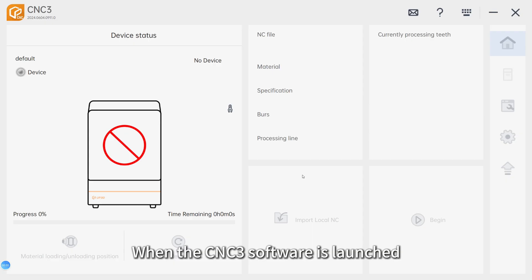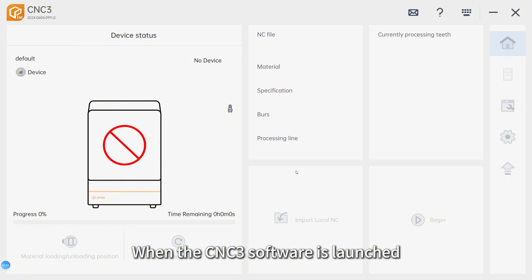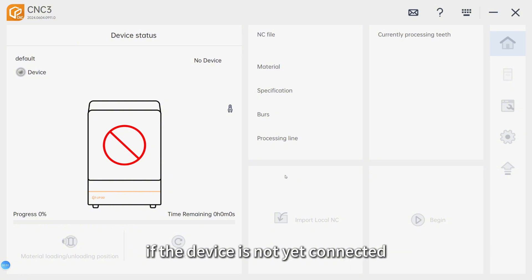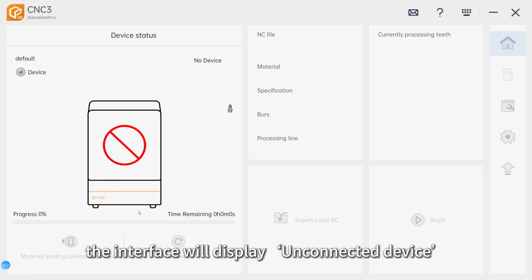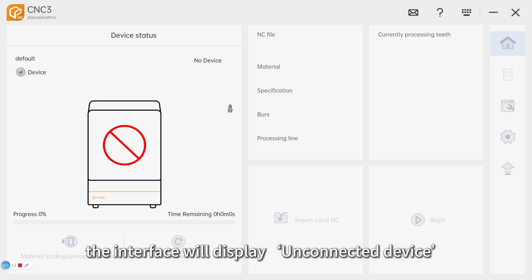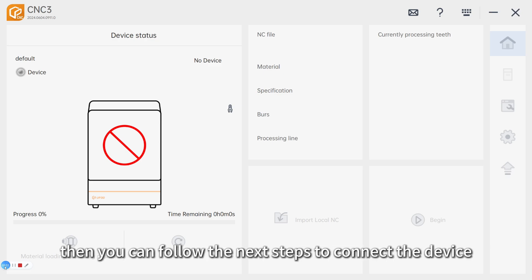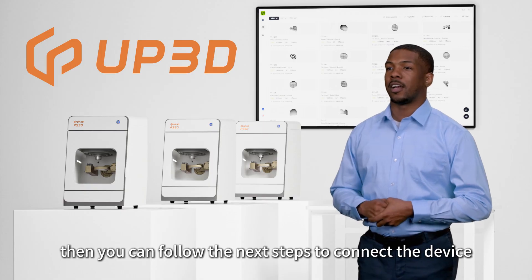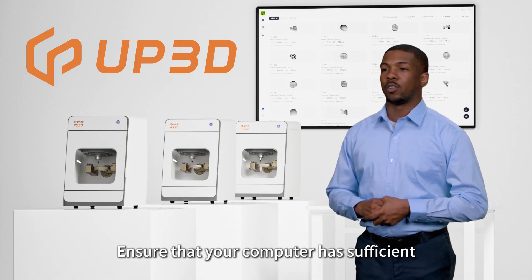When the CNC3 software is launched, if the device is not yet connected, the interface will display 'unconnected device.' You can then follow the next steps to connect the device.